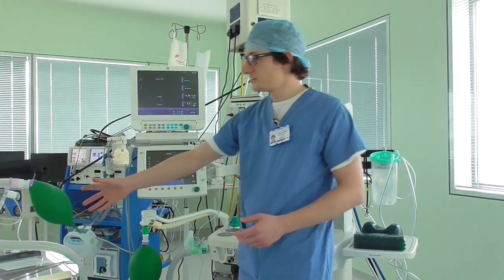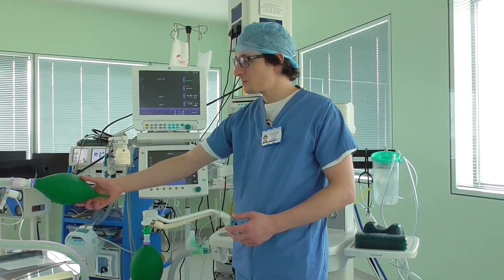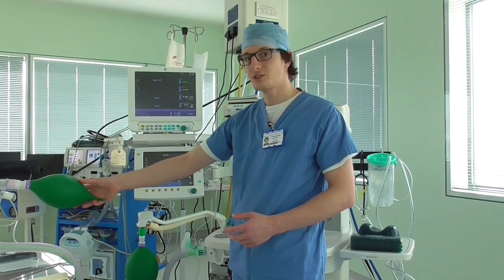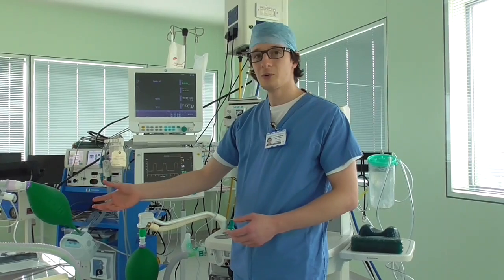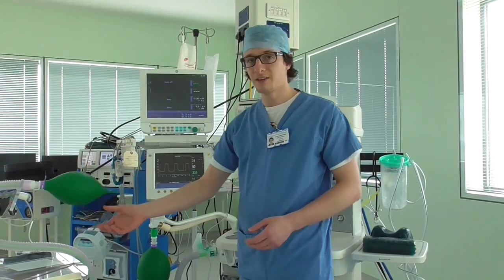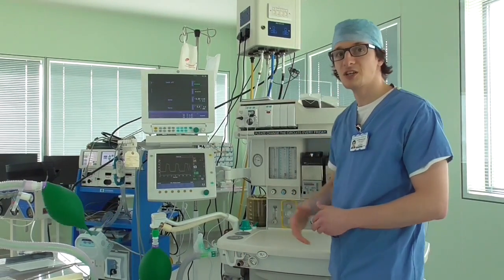This green bag here is pretending to be a patient's lungs at the moment. As you can see, it's going up and down mimicking breathing — the anaesthetic machine is controlling that.